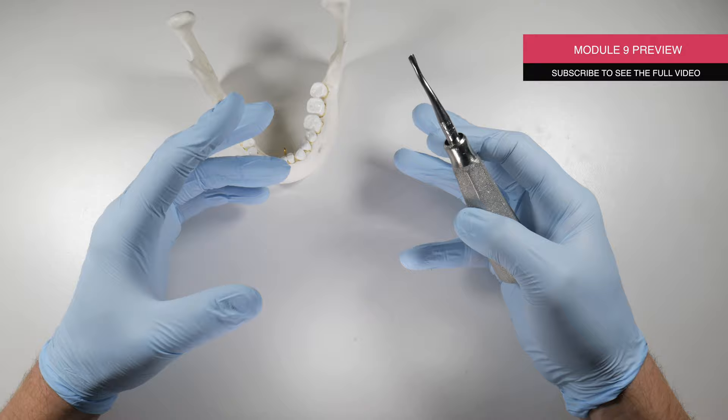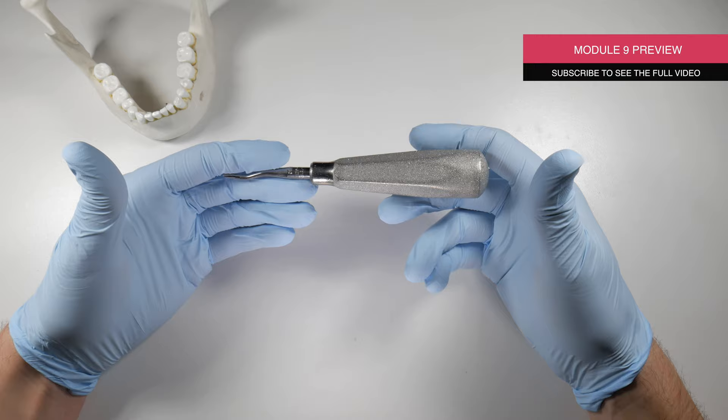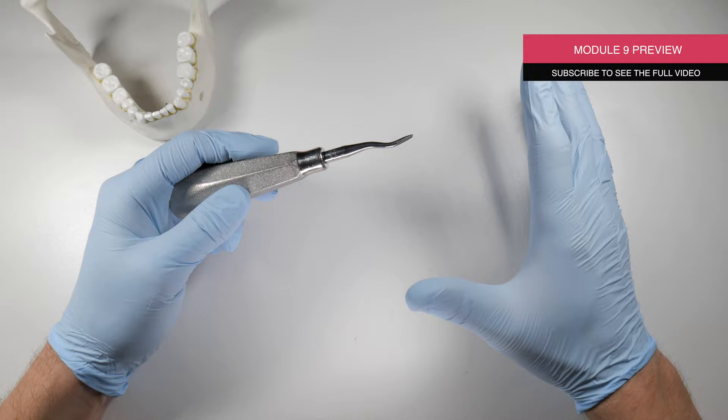Let's start looking at some tips. The first tip that I can give you is how to properly hold the elevator. This is a 77R elevator and it doesn't matter which type of elevator it is, all the concepts I'm about to tell you still apply.